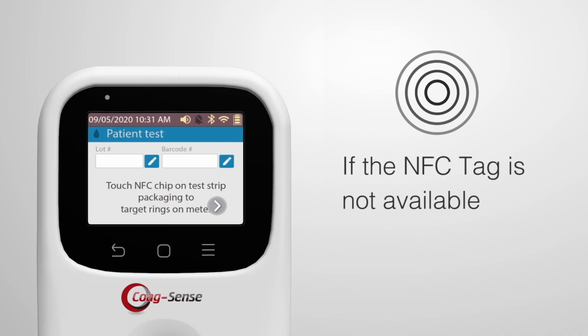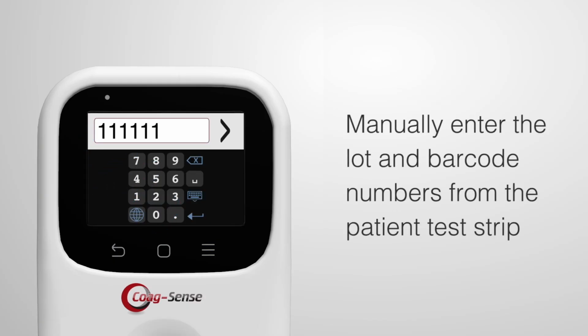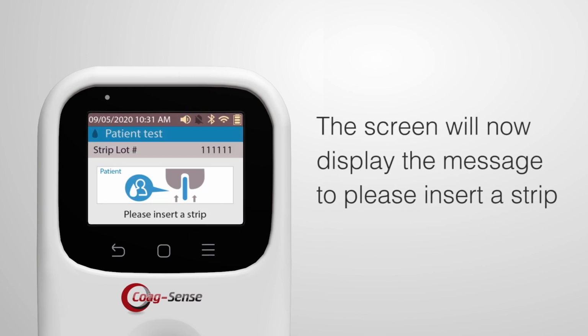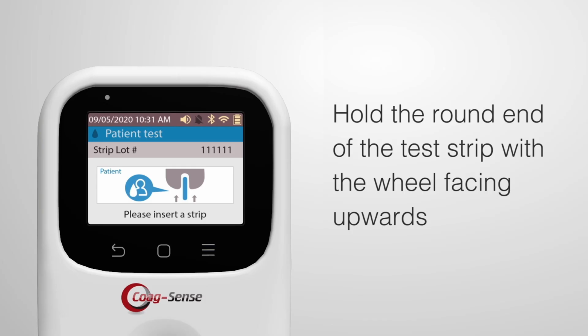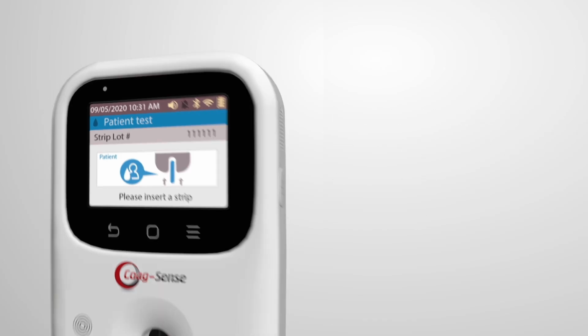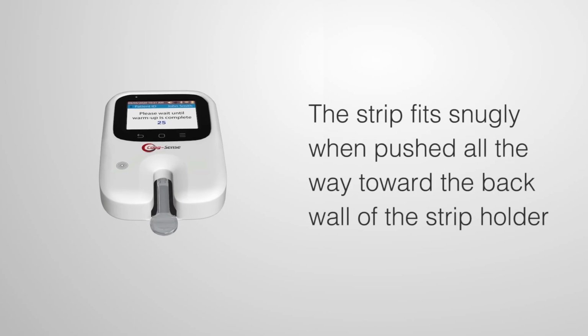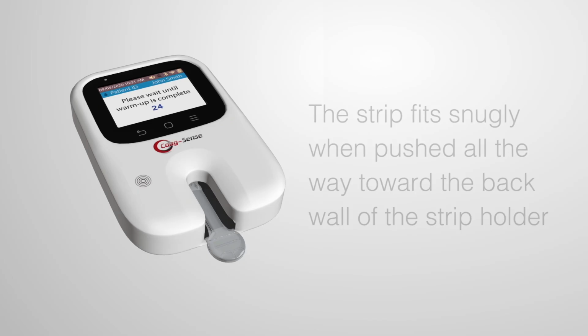If the NFC tag is not available, then manually enter the lot and barcode numbers from the patient test strip, then press the forward arrow button. The screen will now display the message to please insert a strip. Hold the round end of the test strip with the wheel facing upwards. Gently push the strip completely into the meter. The strip fits snugly when pushed all the way toward the back wall of the strip holder.